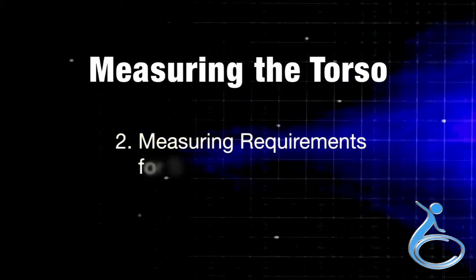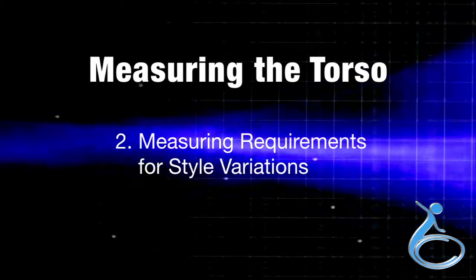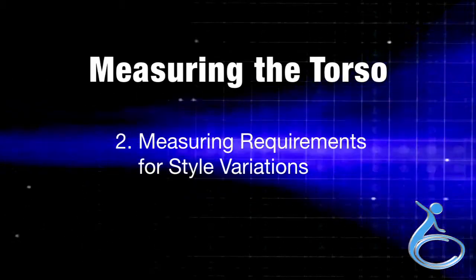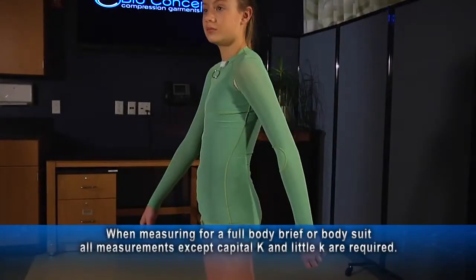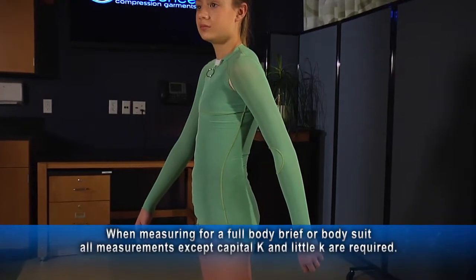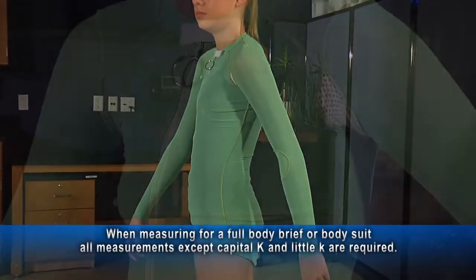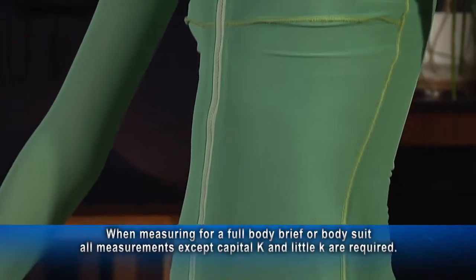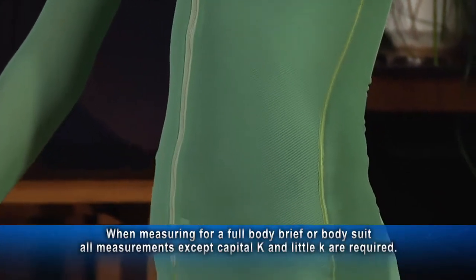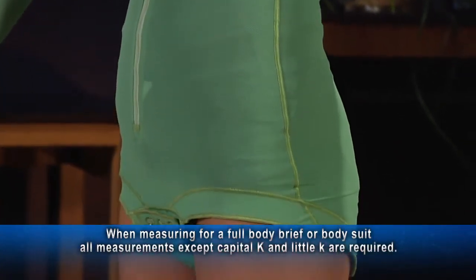Section 2 of the video is measuring requirements for style variations. When measuring for a full body brief or body suit, take all of the torso measurements previously mentioned, with the exceptions of capital K and little K.